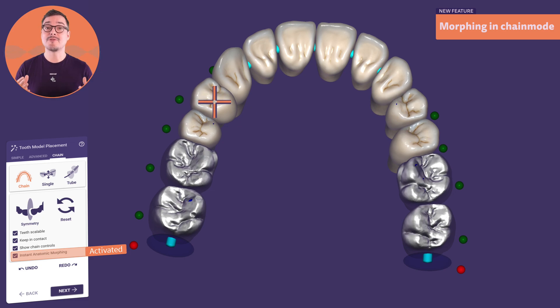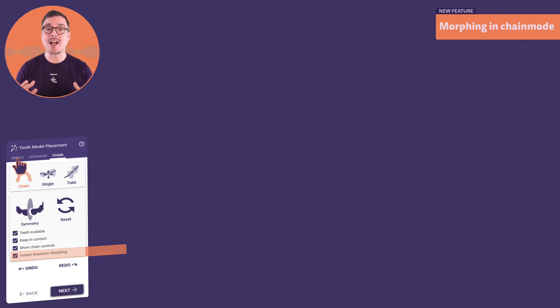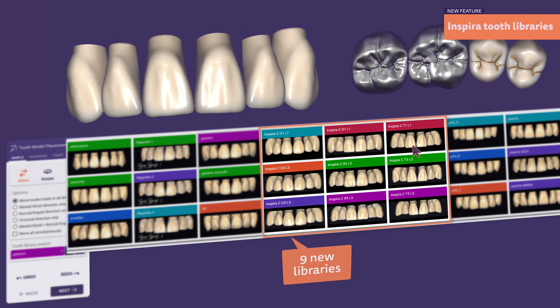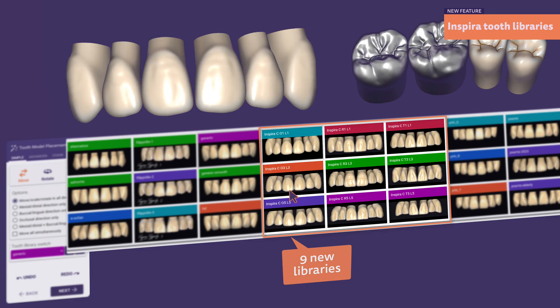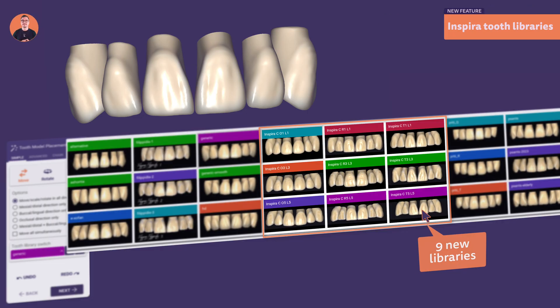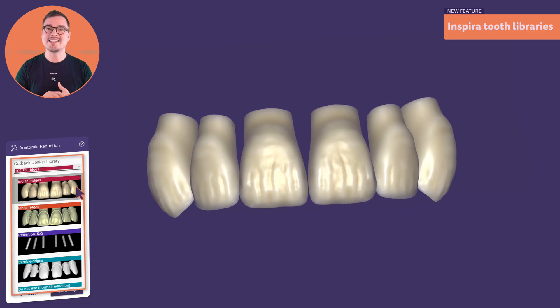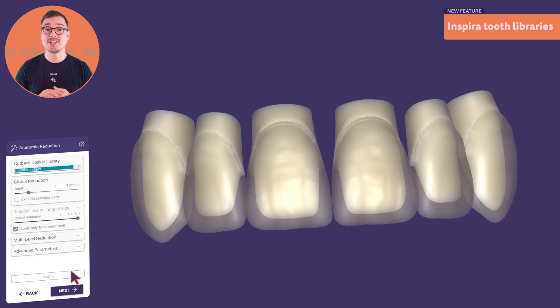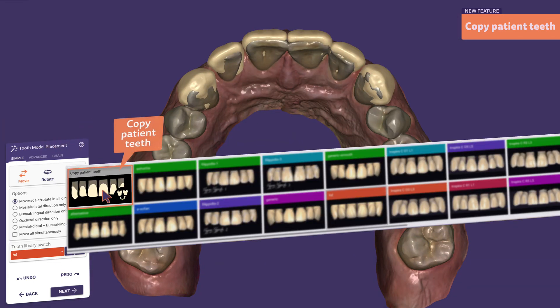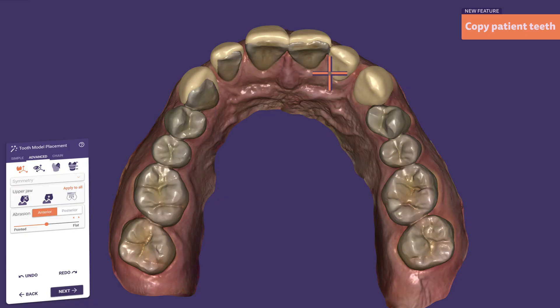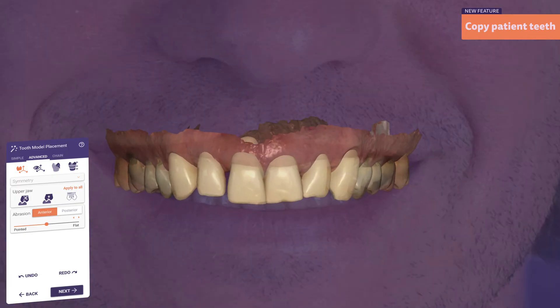We have added nine brand new Inspira tooth shape libraries for crown and bridge workflows. Since the morphology is fully compatible with the Inspira denture tooth shapes, we can now create fixed reconstructions on one side and a removable prosthesis on the other. The new tooth library includes multiple reduced shapes like incisal or labial ridges as well as thimbles. If you prefer the anatomy of your patient over existing tooth libraries, just switch to the patient's own teeth and fully customize the morphology with instant anatomic morphing and all the other tools.